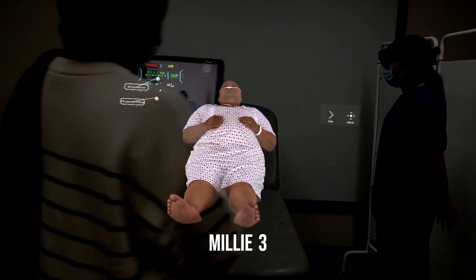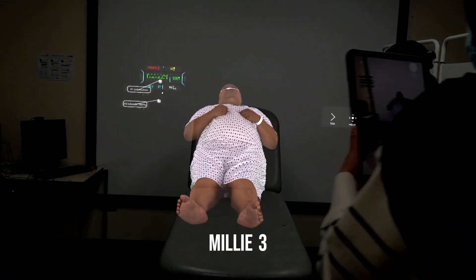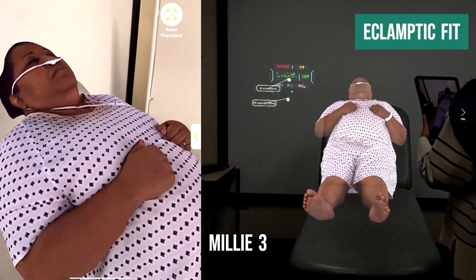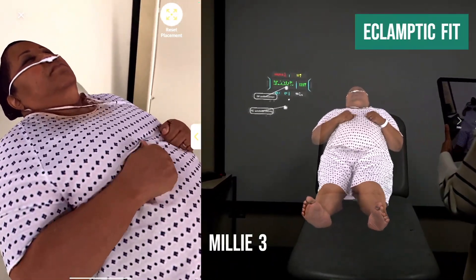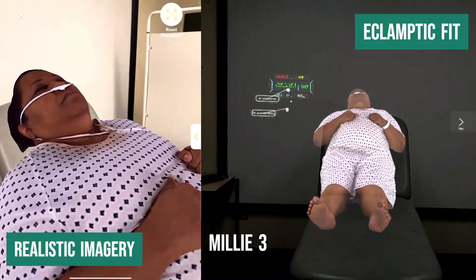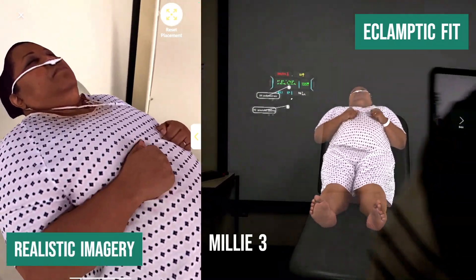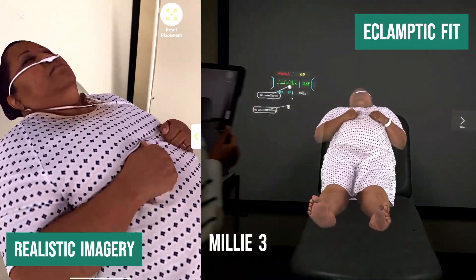Moving on to Millie 3, there is a powerful display of an eclamptic fit, with observations that are further deteriorated. This shows participants an eclamptic fit that luckily is uncommon in clinical practice, highlighting the benefits of Millie as a holographic projection of this obstetric emergency.